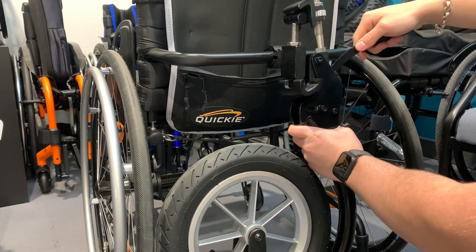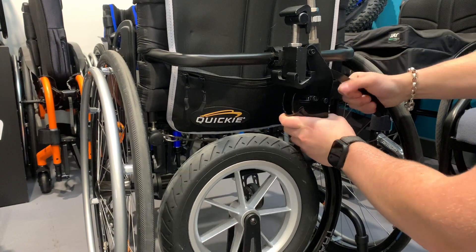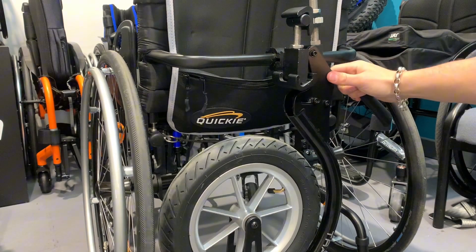I'm going to show you how to attach it. Track wheel open, then clamp that down. That's on — very secure.